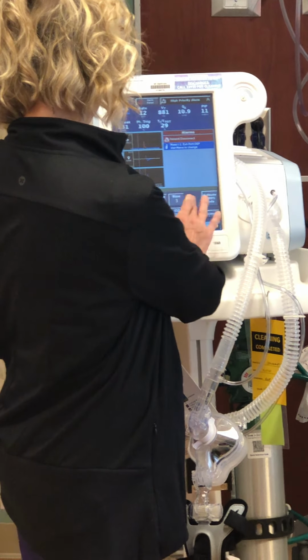We use a tidal volume at 8 cc's per kilogram of ideal body weight, just like we would for our vent settings. We use an EPAP. We use a high and low pressure, and the patient breathes between those two pressures at their comfort level to achieve the target tidal volume that we've set. We usually set a rate of 16, just like we would for a starting ventilator patient. And then of course we can dial in whatever oxygen content we want, and then an I time.